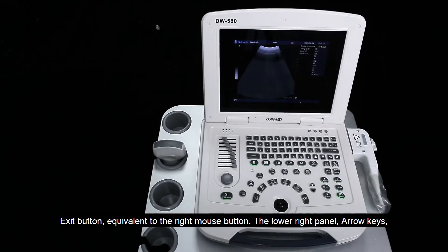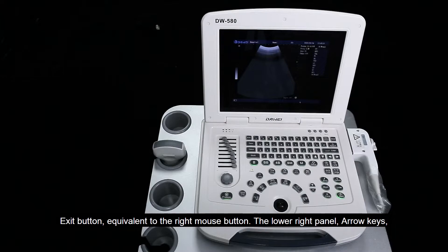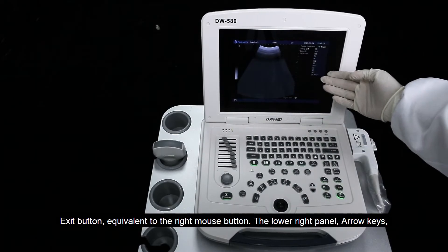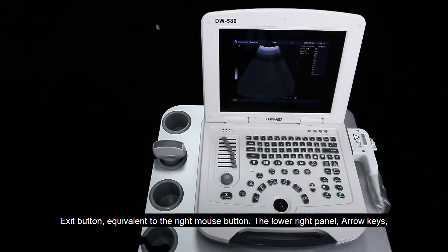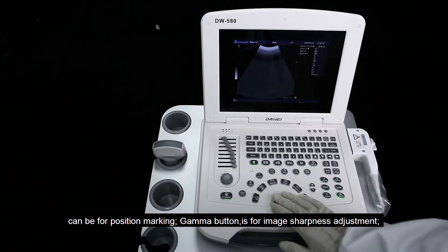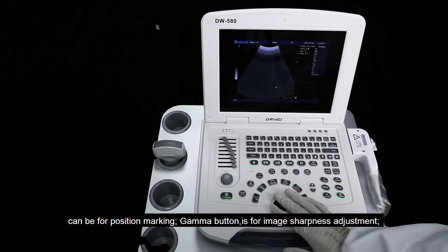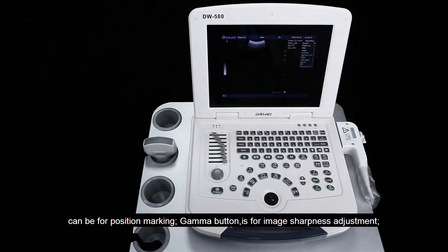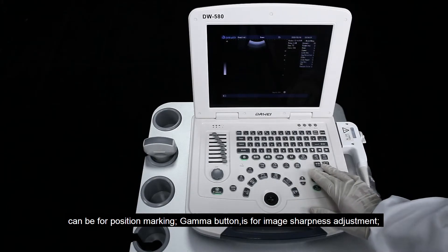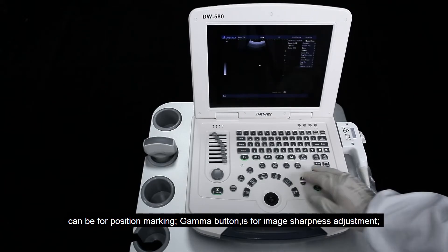The exit button is equivalent to the right mouse button. The lower right panel arrow keys can be used for position marking. The gamma button is for image sharpness adjustment.